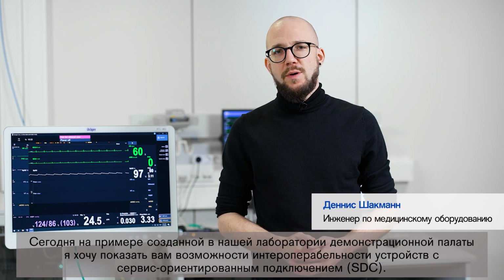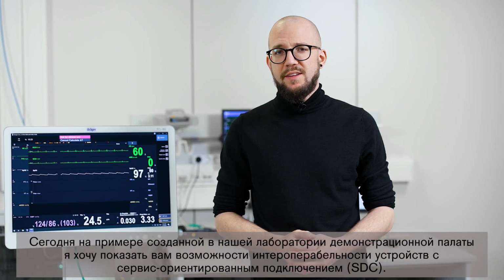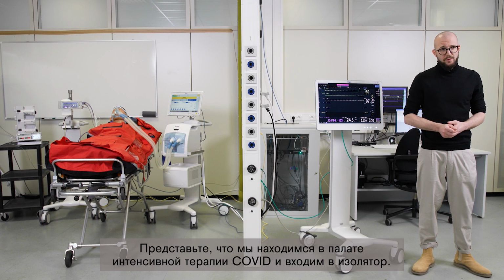Today I want to take you to our showroom we've created in our lab to show you the possibilities of device interoperability via SDC. Imagine we are on a COVID ICU and we will enter an isolation room right now.